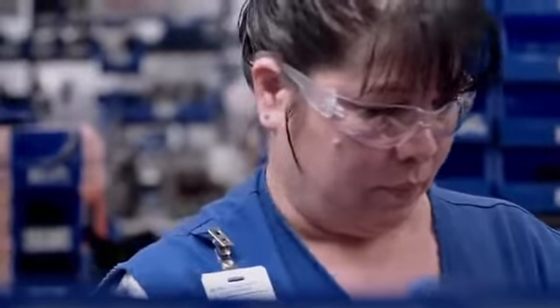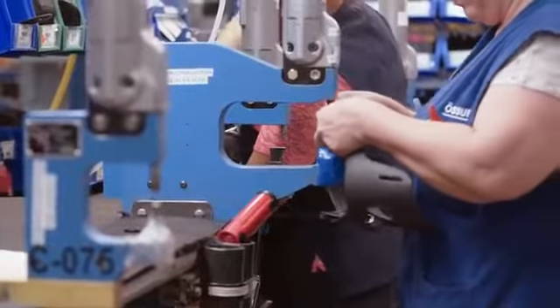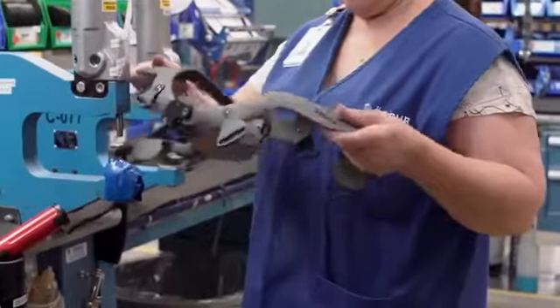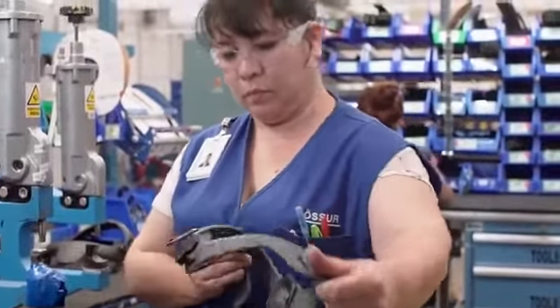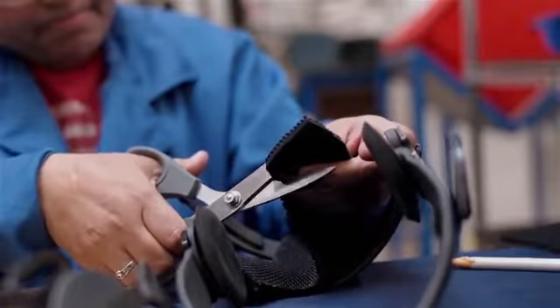The brace comes to life in final assembly. In the case of CTI, the 4-bar linkage system that creates our signature AccuTrack hinge is activated, creating a smooth motion that closely resembles the natural movement of the knee. Straps are tailored to each patient, and liners are custom-made for each frame.